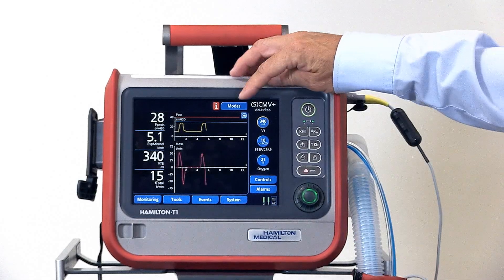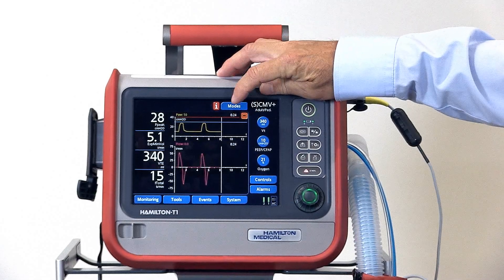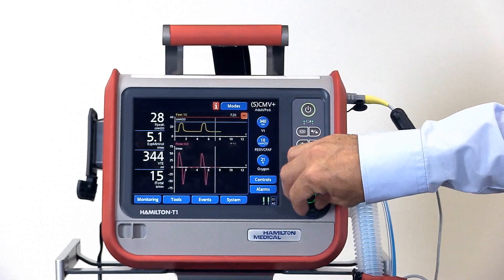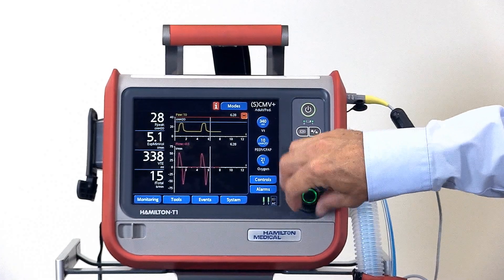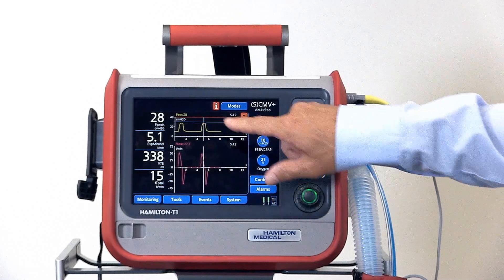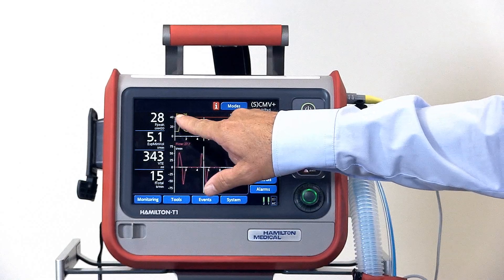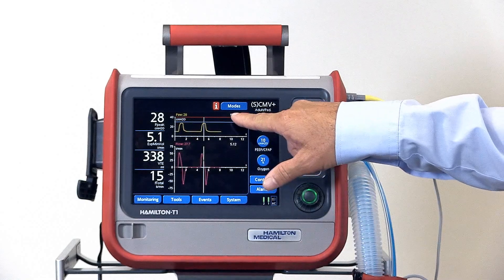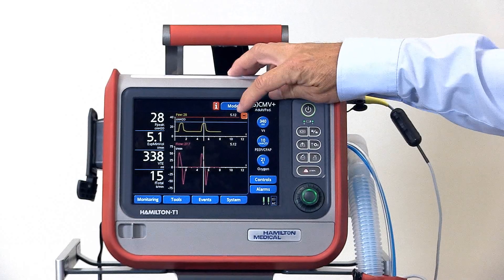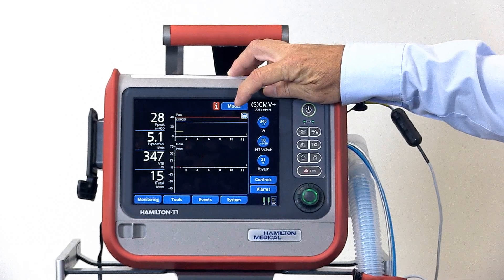We can also freeze each waveform using the button in the upper right. That freezes the waveform and brings up a cursor. Where the cursor is pointing, the value is displayed in the upper left-hand corner and the time on the time scaler is in the right-hand corner. To unfreeze the waveform, touch the button again.